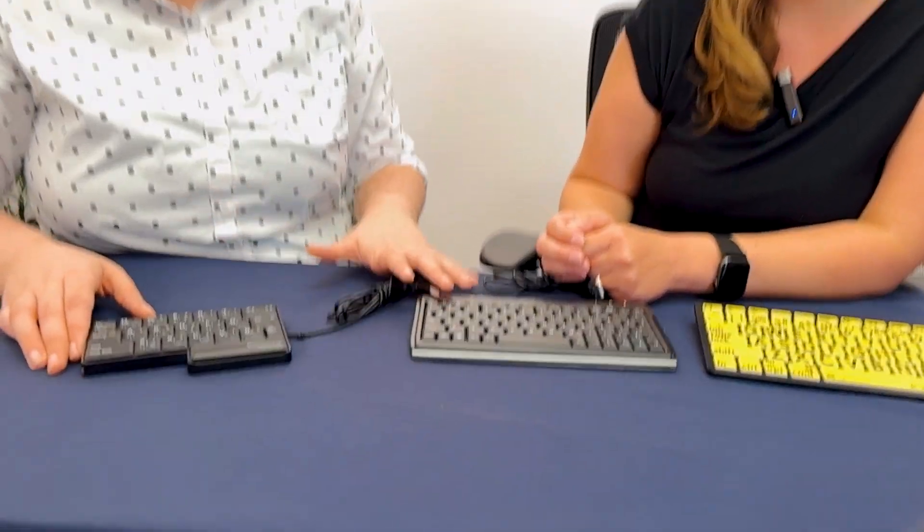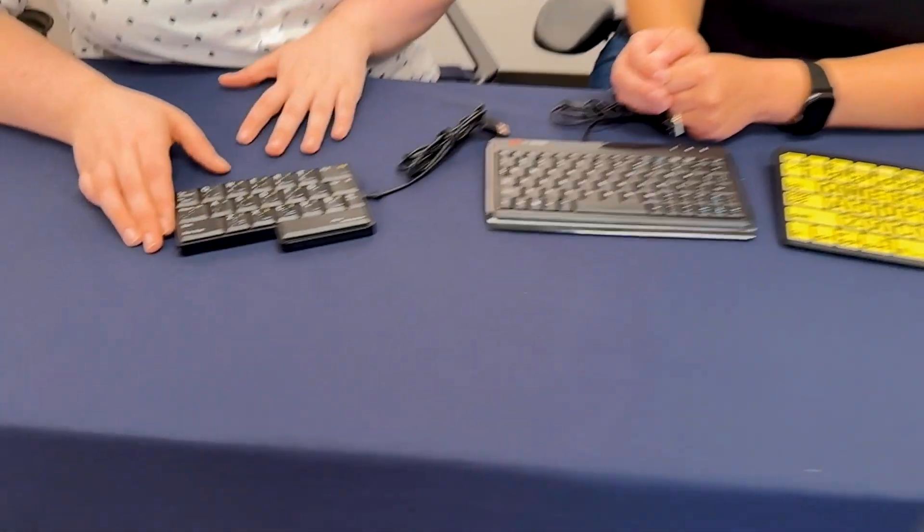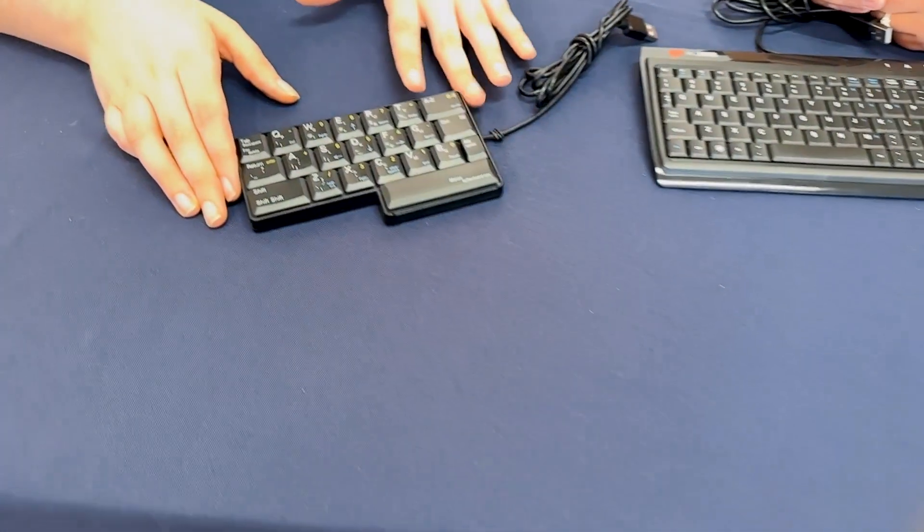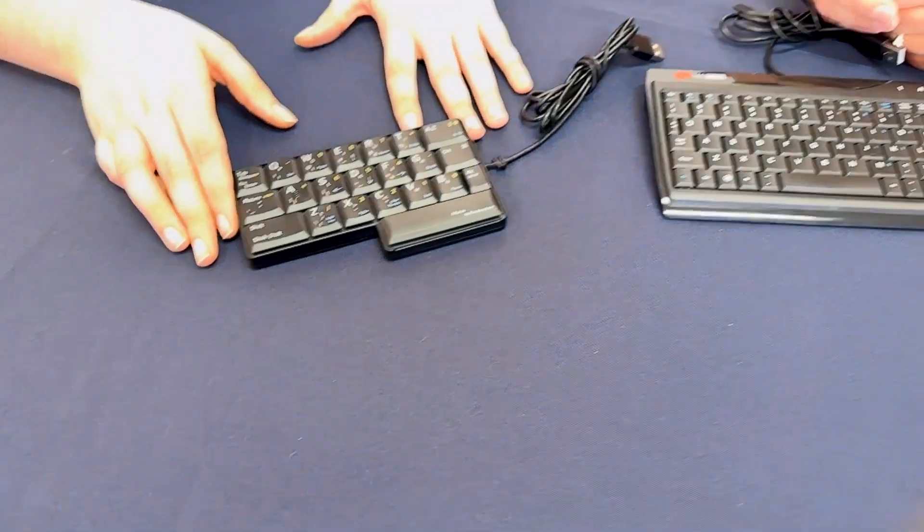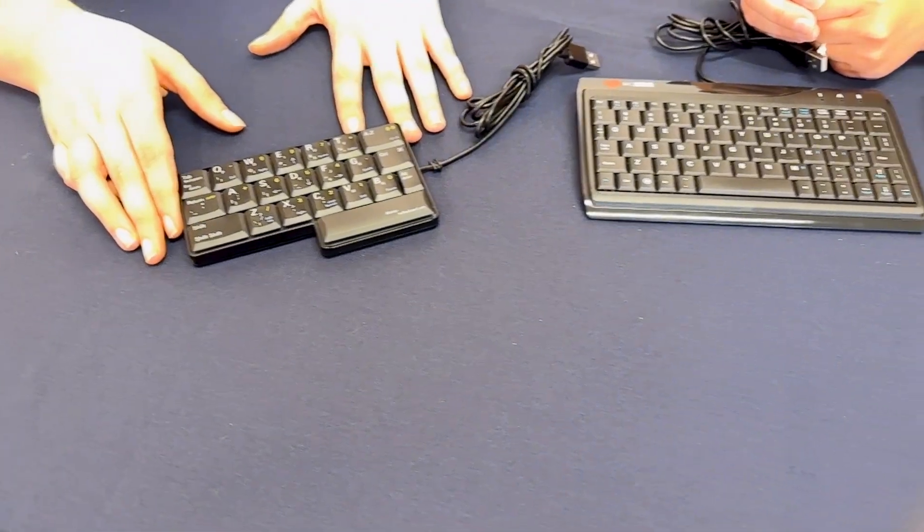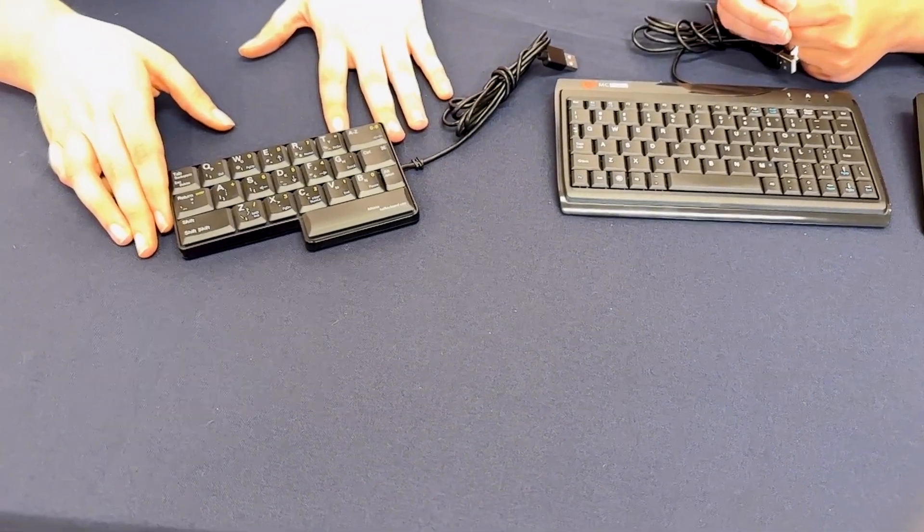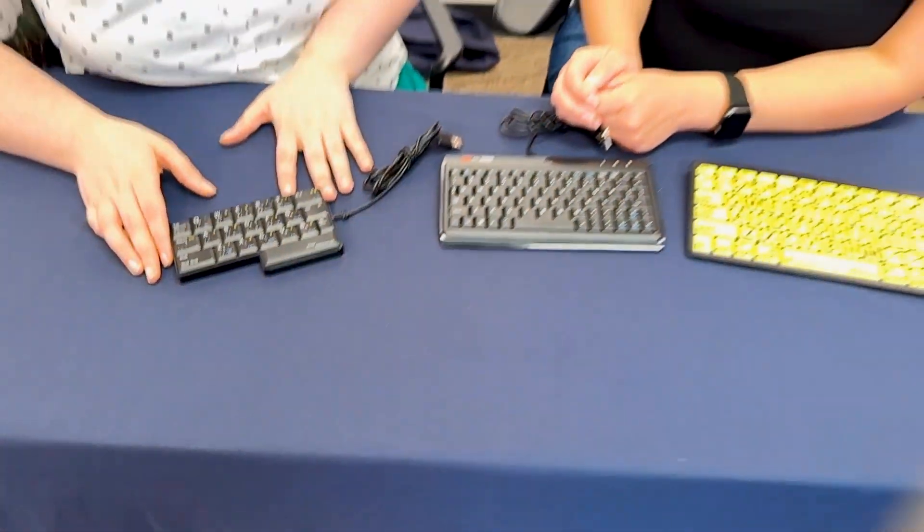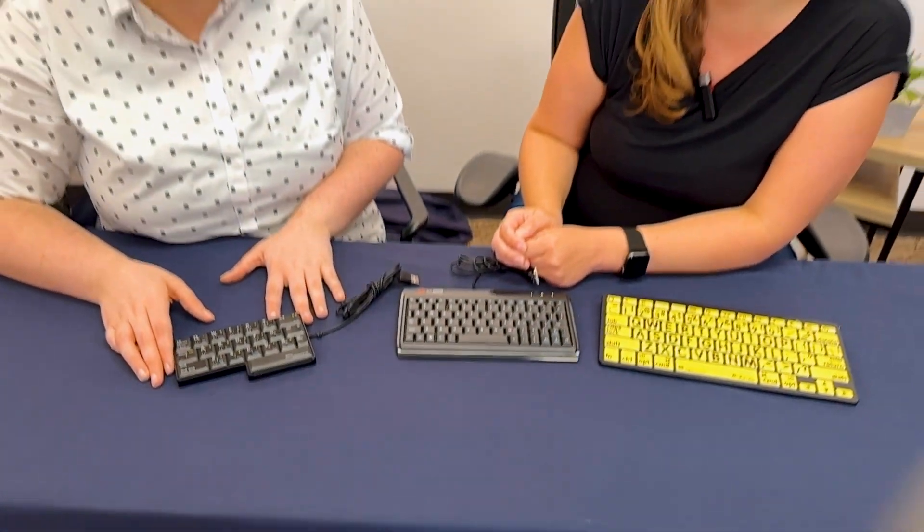This would probably be no more confusing than learning how to type is anyway. Even if you are familiar with a QWERTY keyboard, this is something that you can learn over time if you give yourself some time. It's just a little more frustrating when you think you know where things are.